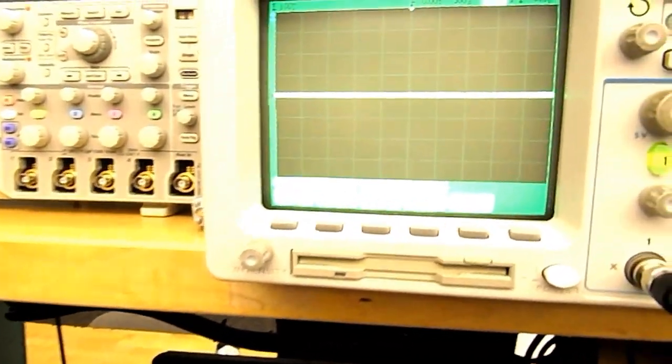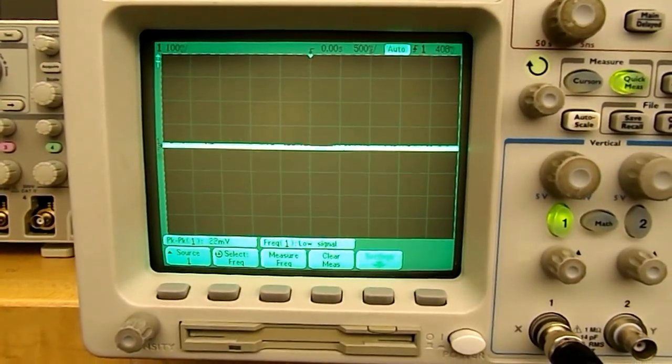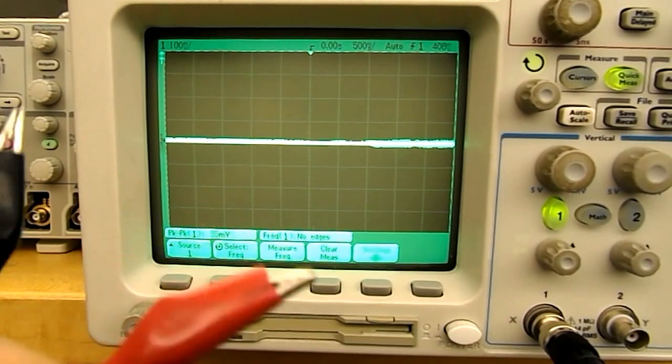Now we want to verify the ECG signal so we will connect it to our oscilloscope that we have here. Currently the oscilloscope is not connected. No signal.